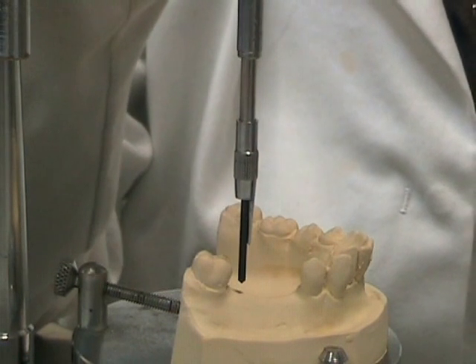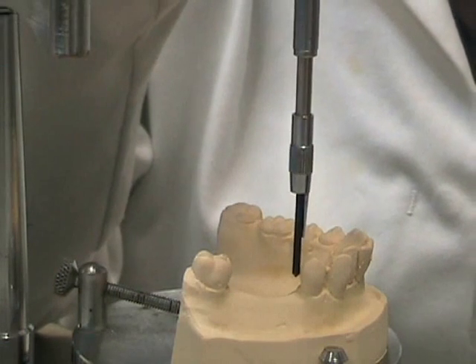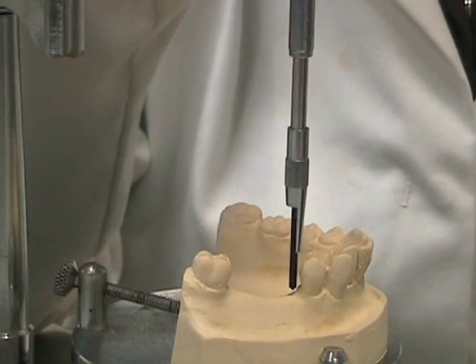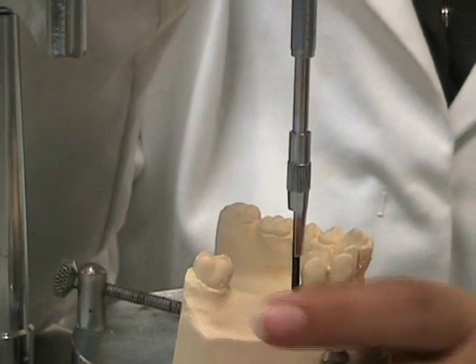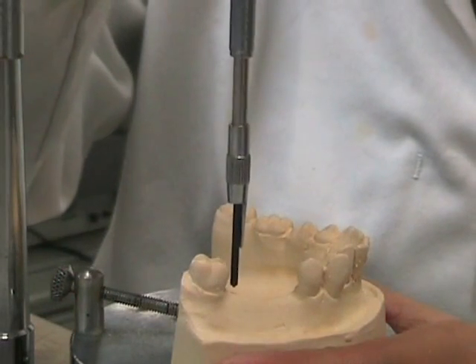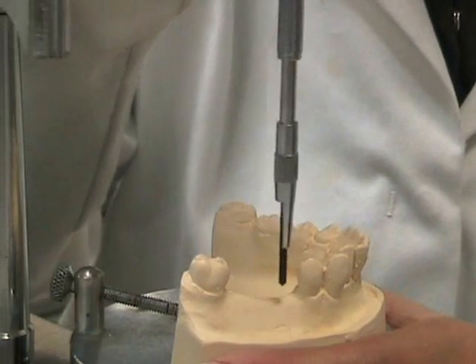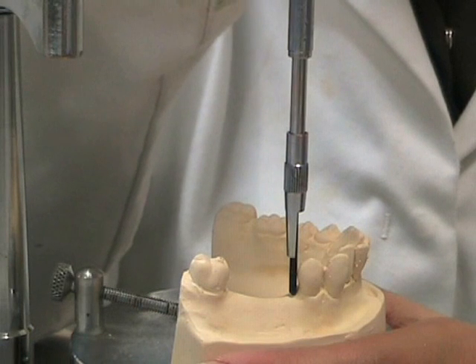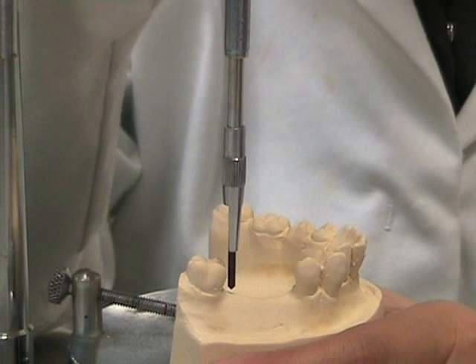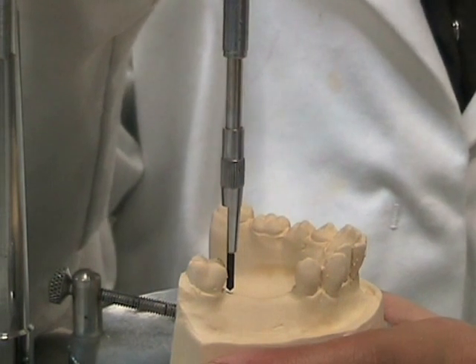In order to find the desired position, we must make sure that these triangles of light between the two teeth are as equal as possible. We must tilt the cast in order to find a position that is desirable to help seat the denture into place. The desired position of the cast is never more than 10 degrees from the initial alignment of the cast table.